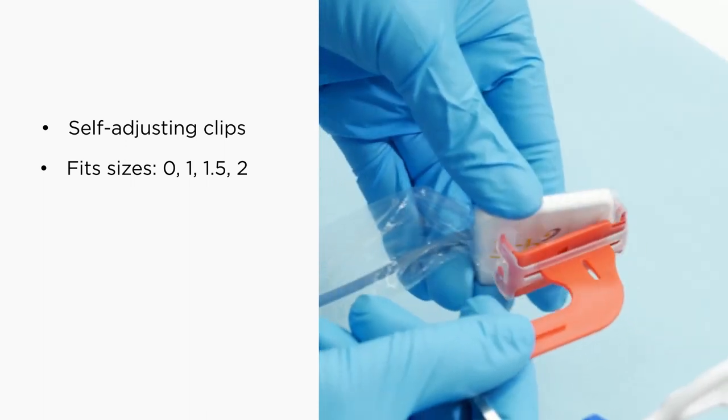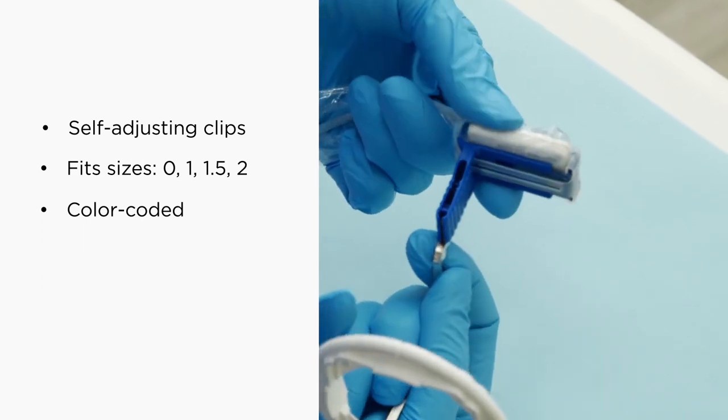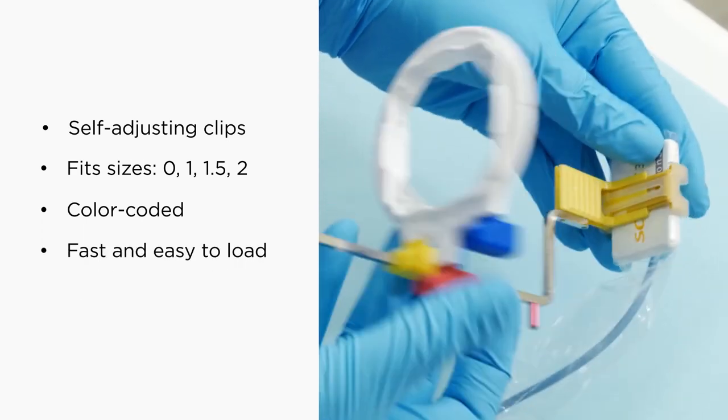The color-coded, custom-fit bite blocks are autoclavable and fast and easy to load. Rigid sensor support keeps the sensor positioned, achieving accurate imaging.